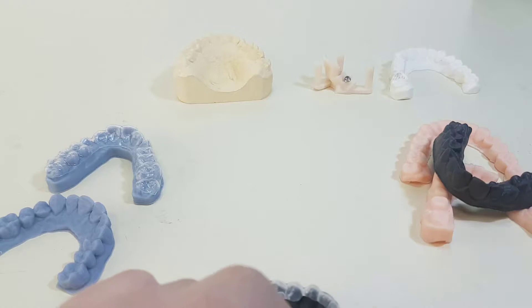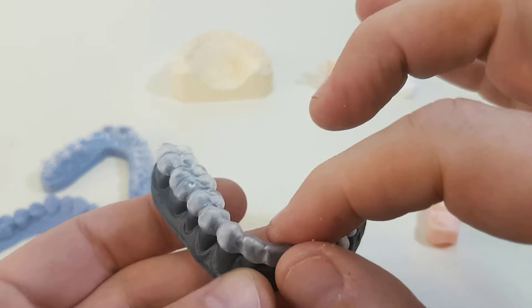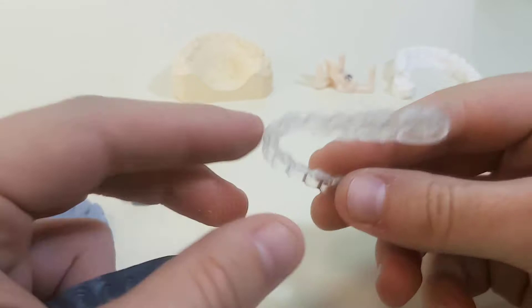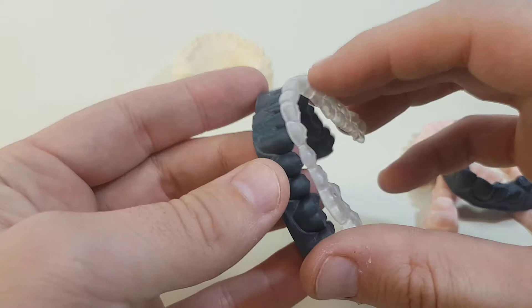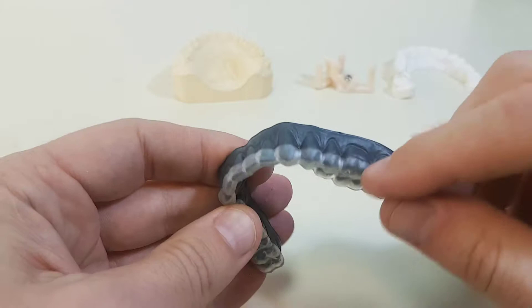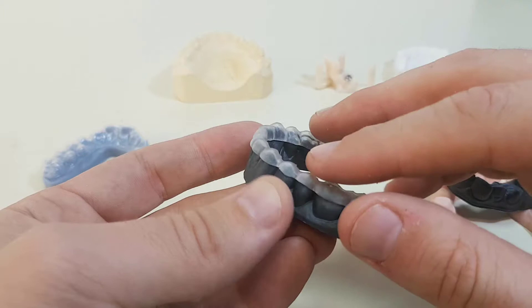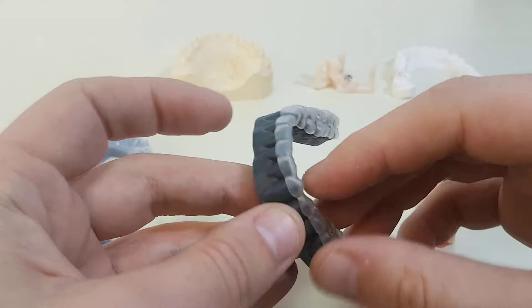This was just a brief experiment. This is a directly printed piece — it's not a material you can actually use for bruxism — but it does fit very well. Formlabs does sell a specialized biocompatible material that can withstand the pressures and is biocompatible for up to about 24 hours, so you can print it directly from the machine with very little work needed to fit it for occlusion. So this is another example of the different materials you can use.